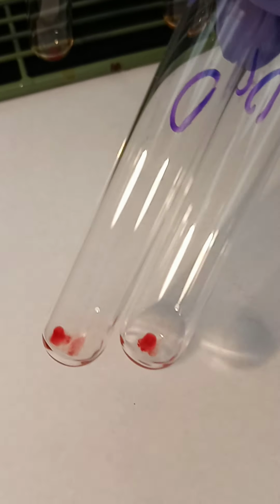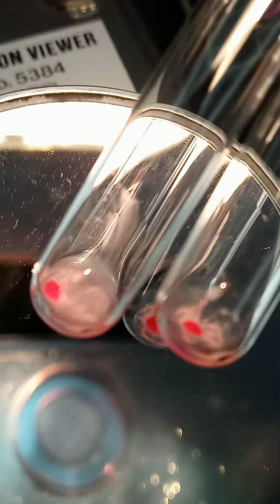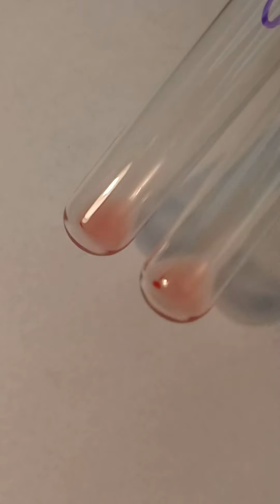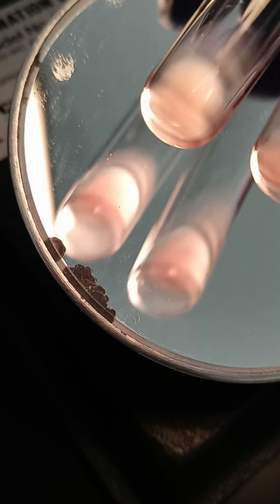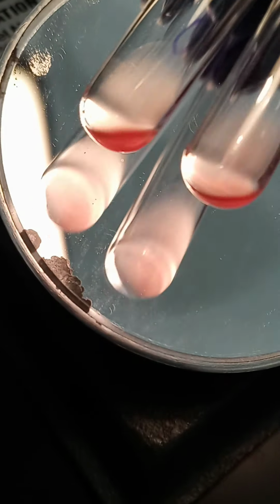Okay, now these are our D and our D control. Normally I look at those right after my A, B, and A comma B before I look at my reverse tubes, but I had them sitting somewhere else the way I'm trying to record this. But these are our Ds, our D and our D control tubes. Again, you want to completely resuspend that cell button. Okay, so then tell me what your reactions are for your D and your D control.